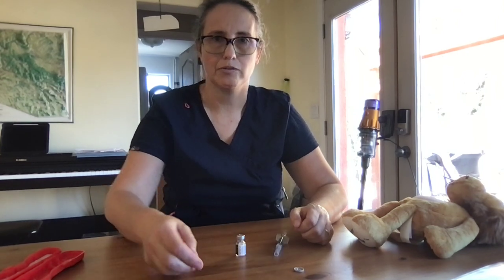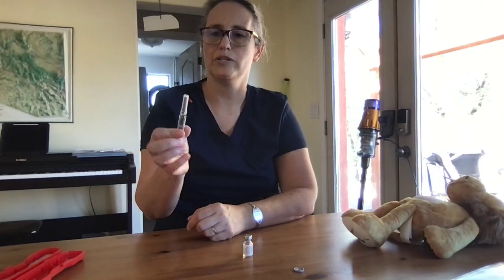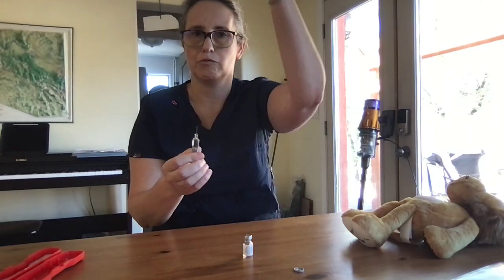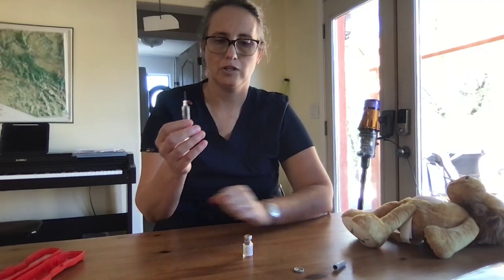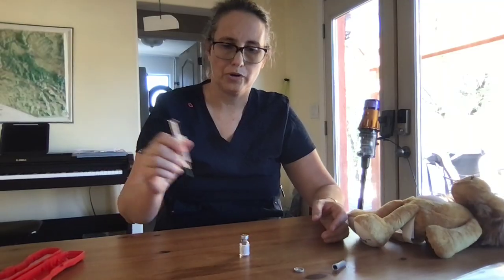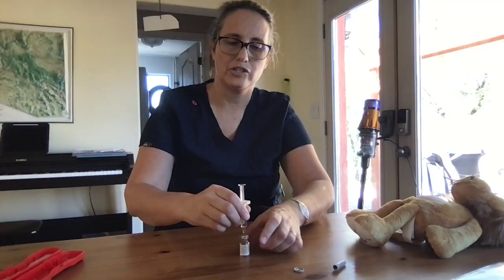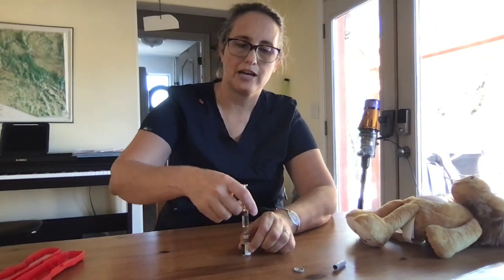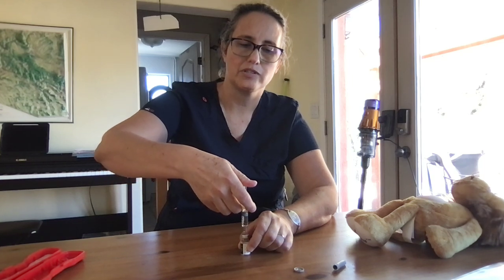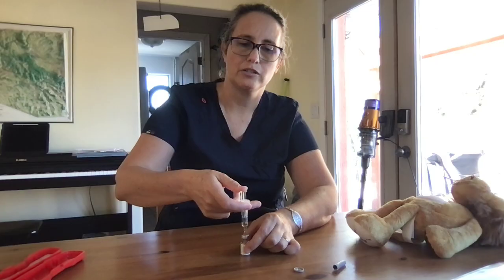First, we're going to take the cap off of the glucagon powder, and we're going to hold this syringe in our hand. We're going to draw straight up to take the cap off the needle, and while we inject the syringe into the vial, we're going to keep our hands away so that we don't accidentally poke ourselves in the fingers. We're going to gently push down on the plunger, injecting all the liquid into the vial.